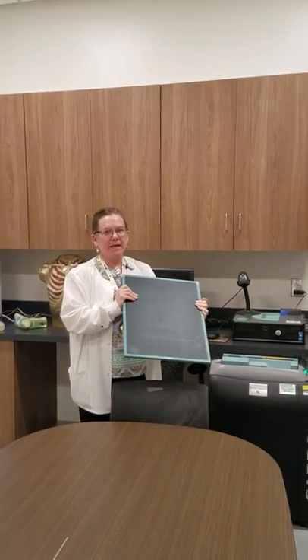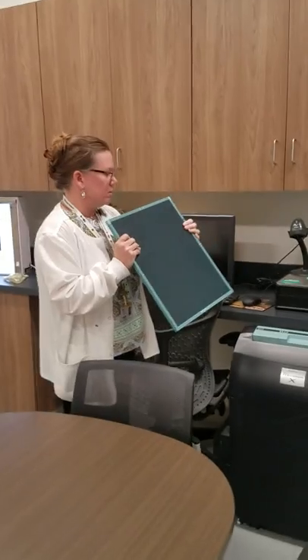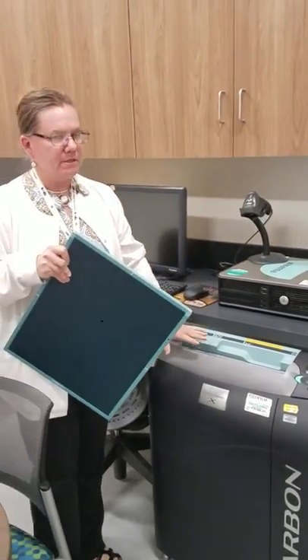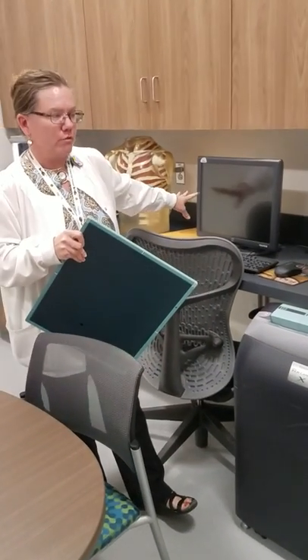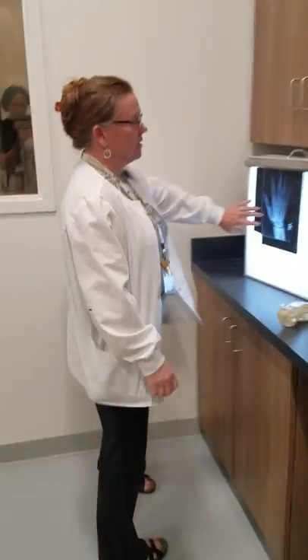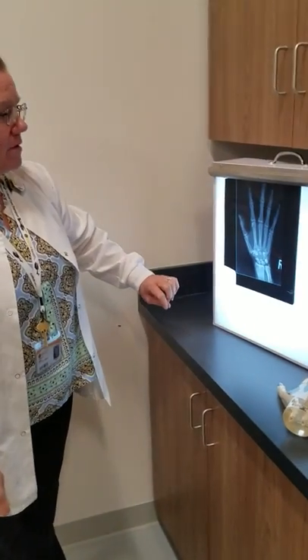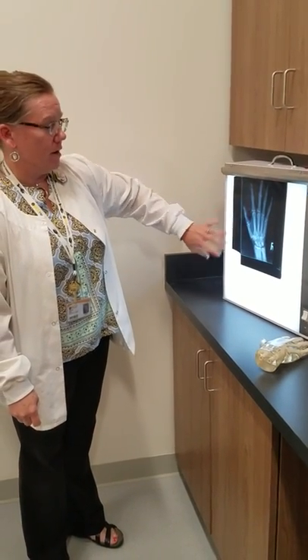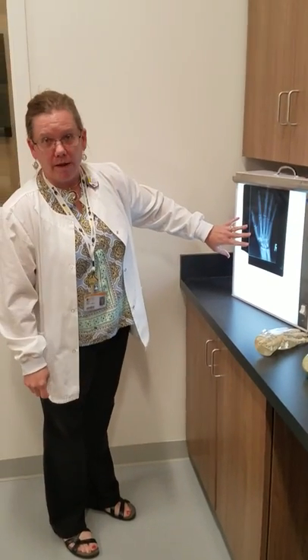Once we have taken our image, we go to the next room where we develop our images. We bring the cassette in, flash the patient information onto it, run it through the CR reader, and then the image comes up on the screen. If you were still doing old-fashioned film developing, the film would come out and you would hang it up to view it. We still use film examples like this to teach image quality so students know what a good image should look like.